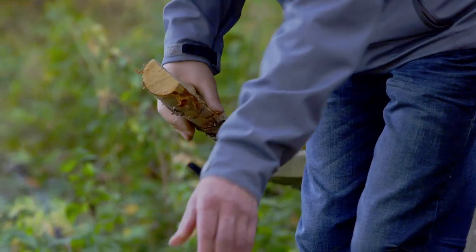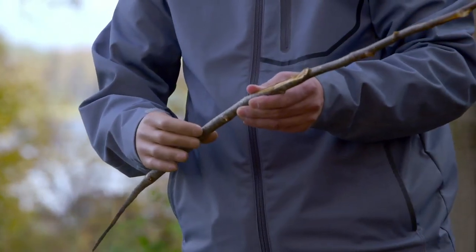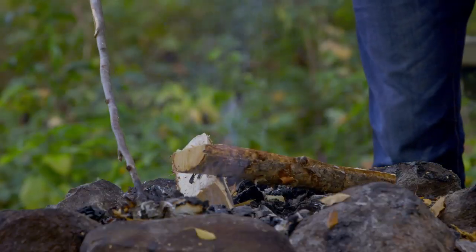This arm is really amazing. I use it to everything. With advanced materials that fuse with human tissue, the science fiction of the bionic man is becoming science fact.